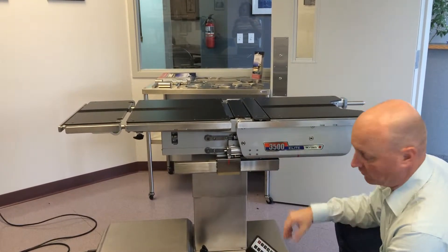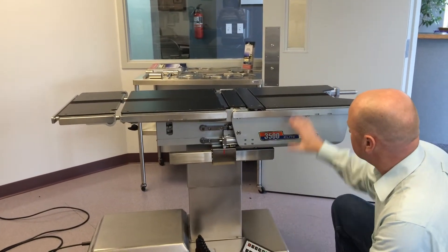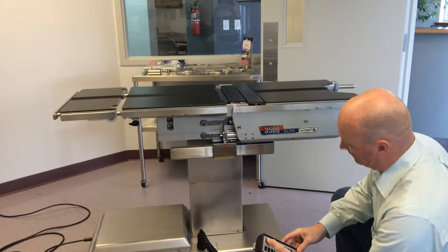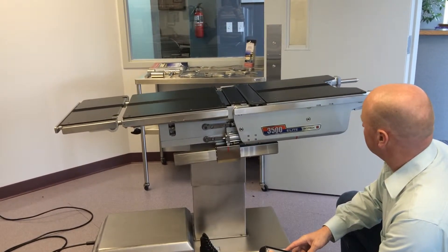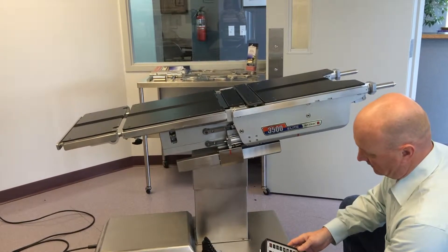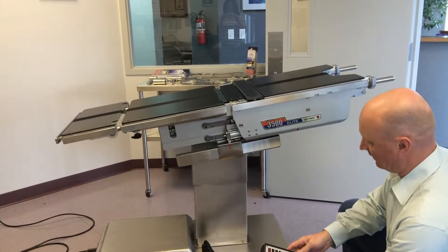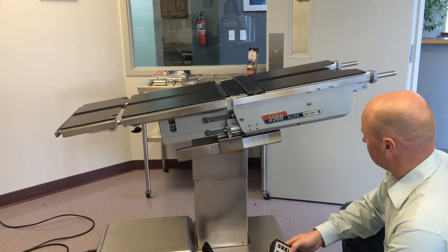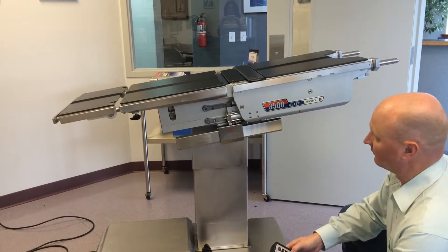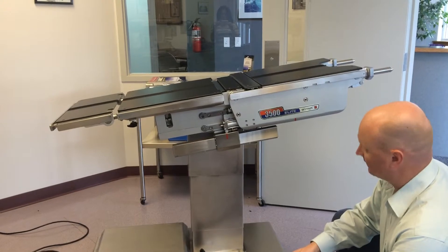But you'll get it — I think it's 21 inches, which is what the slide dimension is. So from there, you can either go into Trendelenburg to get that patient up higher if that's needed, table up if you want higher elevation, depending on whatever your positioning requirements are, then reverse Trendelenburg.